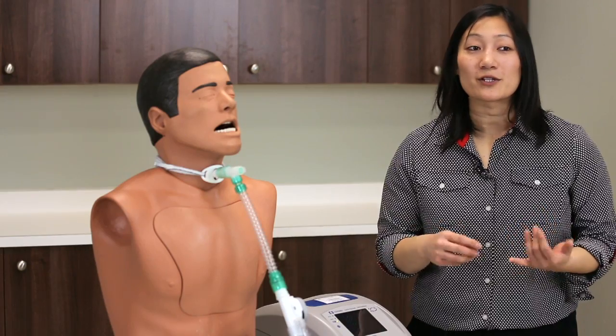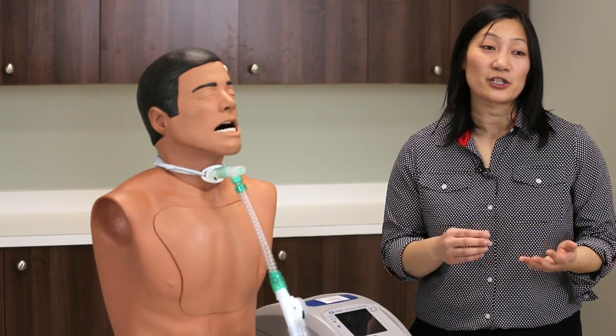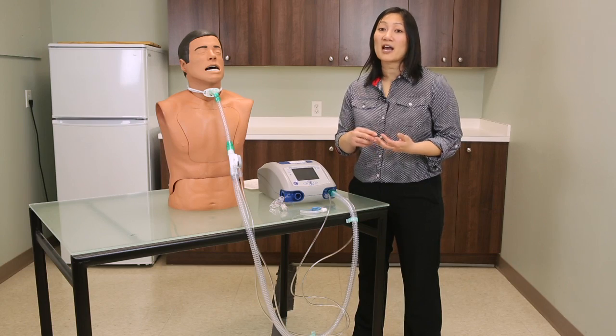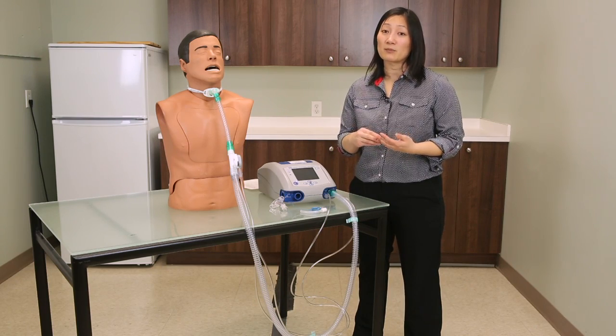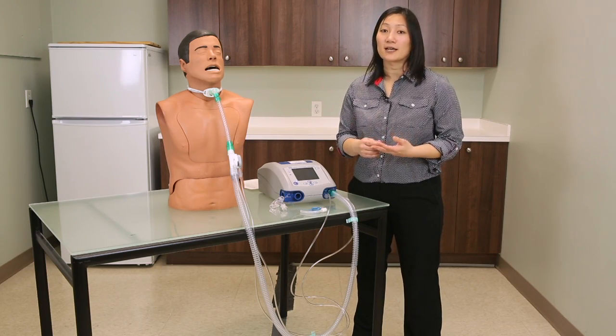Therefore it is critical to verify the proper setting and operation of the low pressure alarm to have it visibly and audibly alarm — otherwise it could result in death.